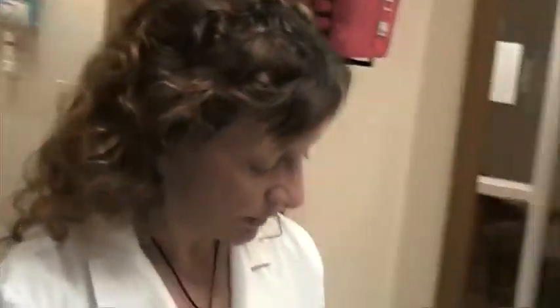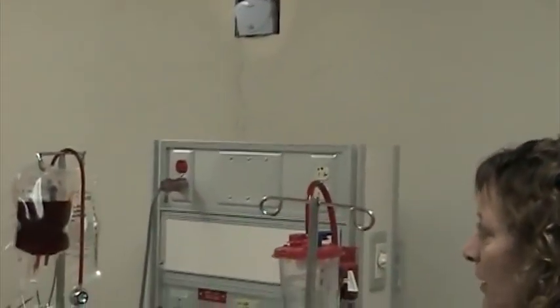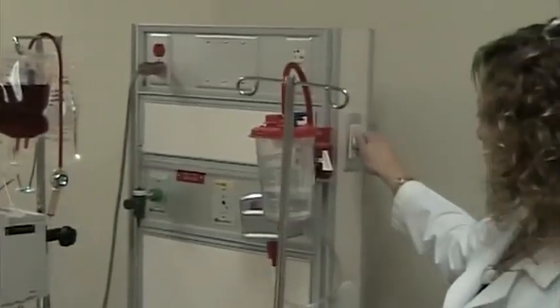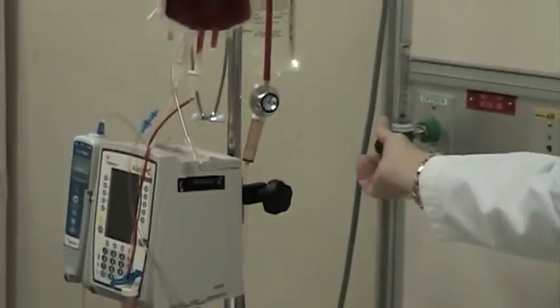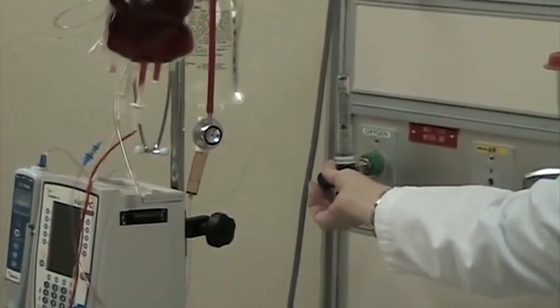The other thing that we want you to be aware of in this room is that we can put oxygen on the SimMan. You would need to go to your supply shelves, hook up the oxygen just like you would normally. However, to turn it on, you need to turn the dial on the side of the headboard, and then the oxygen will be operational. So you can turn it to what you need there.